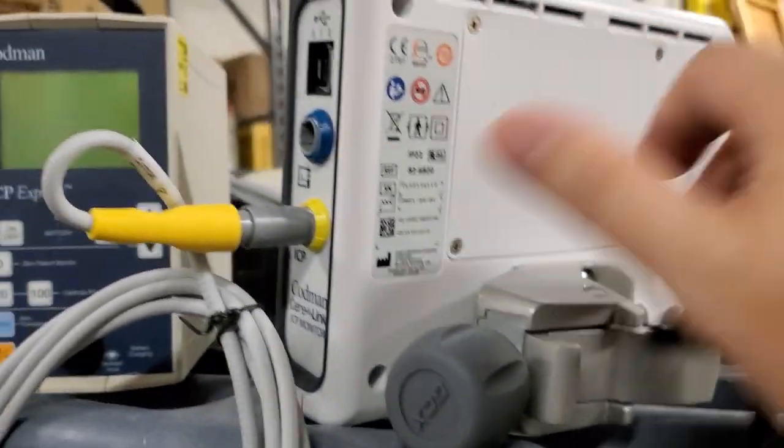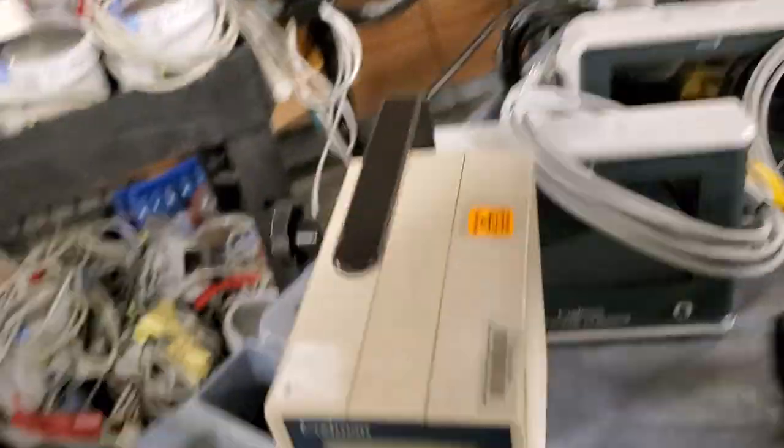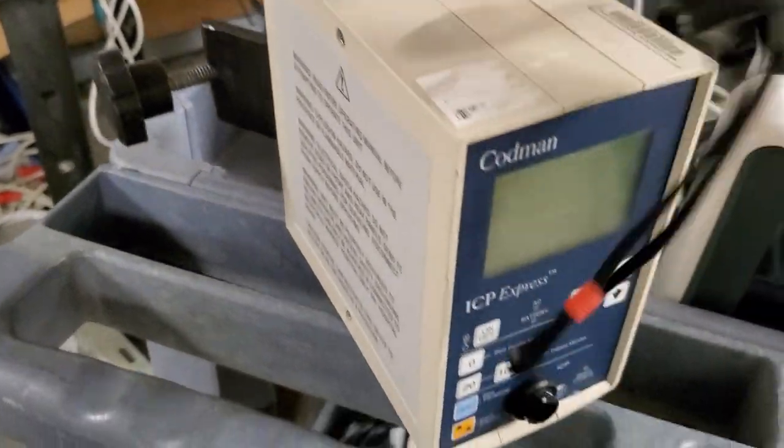I'll tell you what, Codman, I expect nothing less. I do expect better than that membrane power button. That's garbage. I'll tell you right now, that's garbage. But considering the product that it's replacing is this guy, the ICP Express.